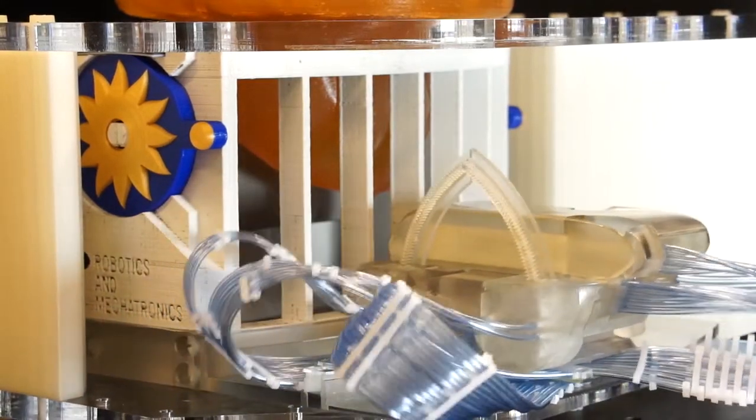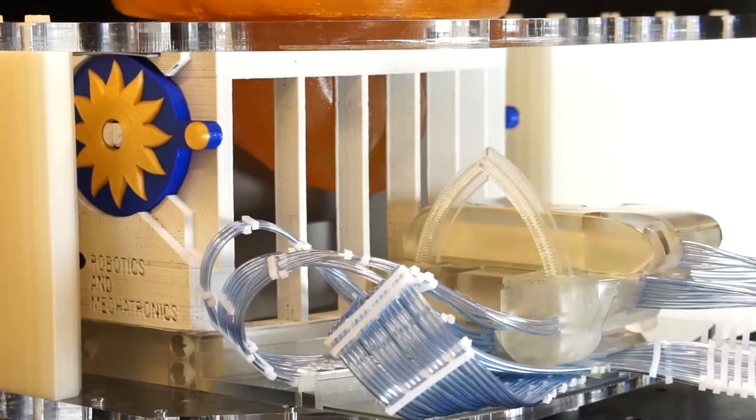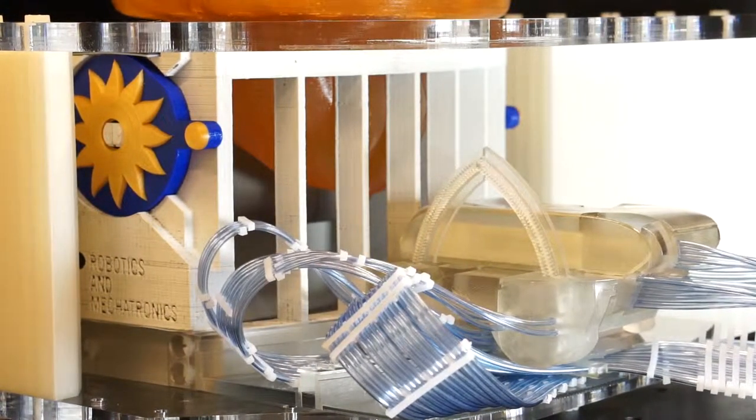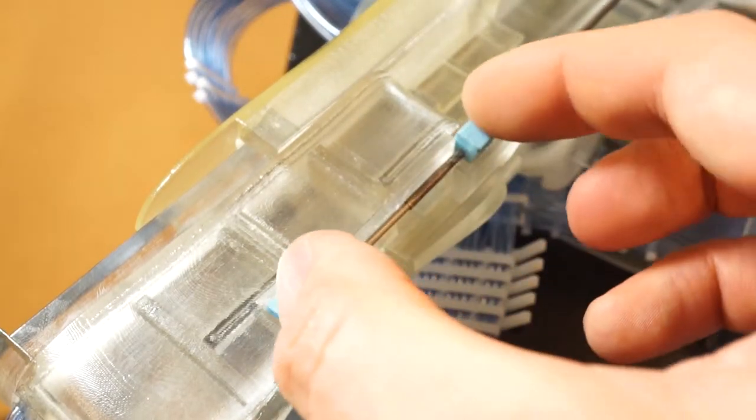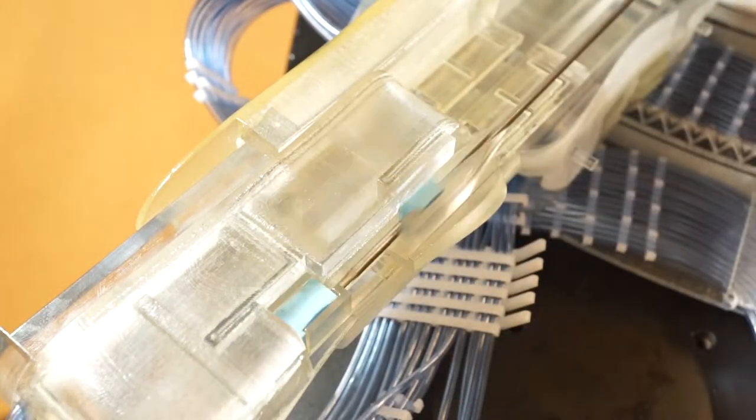Dual speed motors allow both fast and precise movements. The MR conditional biopsy needle is the only metallic component in the entire system.